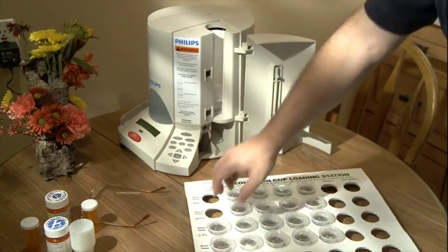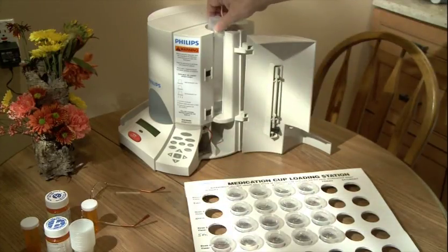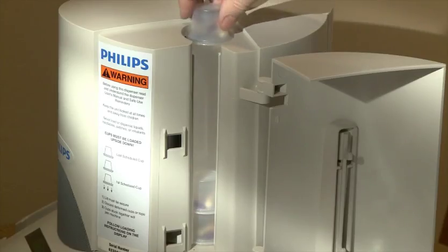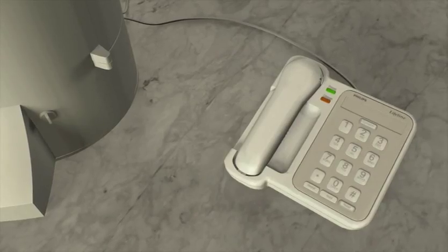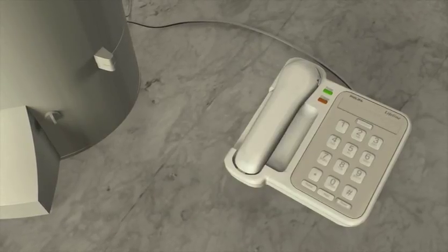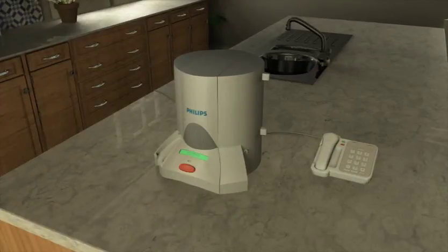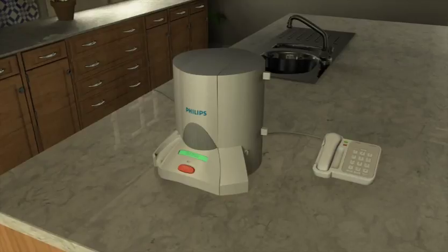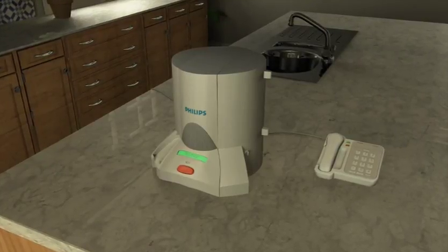In addition, thanks to the medication dispenser's large capacity, a caregiver can pre-plan for unexpected issues. Hi, Mom. My flight has been canceled due to bad weather, but I've loaded an extra four days of medication into the dispenser, so you should be fine until I get home on Thursday.